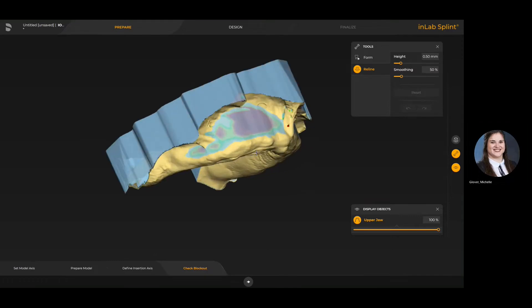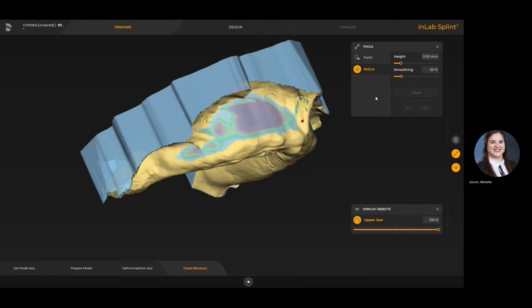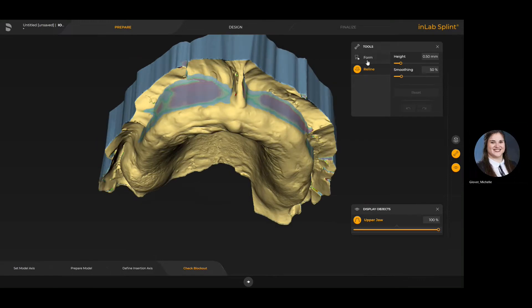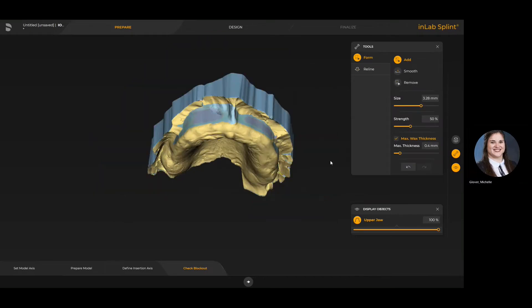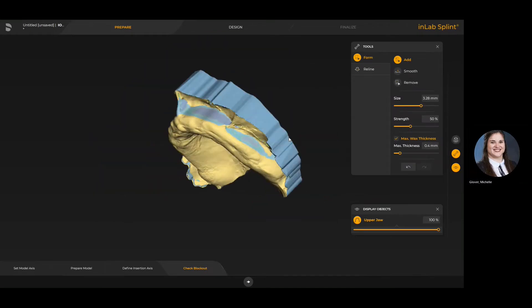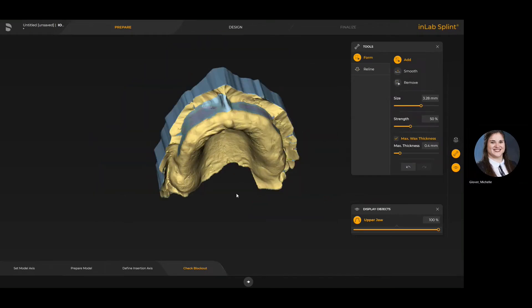At this point we have the ability to add more block out. With the height tool under reline we can add a thicker block out in a more controlled manner, whereas with the form tool we can set a max wax thickness to ensure that as we're adding material it never exceeds the amount set for that maximum thickness.